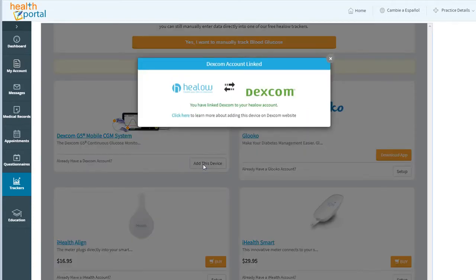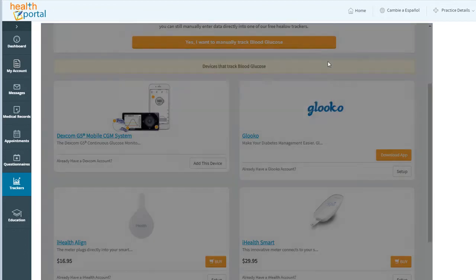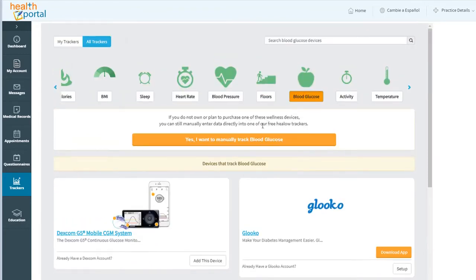Click Add this device. We've already added a device so it's not going to let me add more than one, so unfortunately I can't show you the actual sign-on — but it's very intuitive from here. If you're using Explorer, it will launch another window and it will look just like your Clarity sign-on from a web browser. Enter your Clarity username and password and click OK and you should be linked. You'll return to this page and you'll be essentially all done.